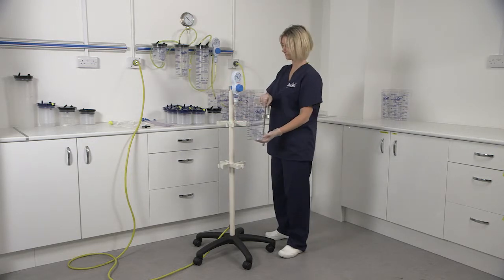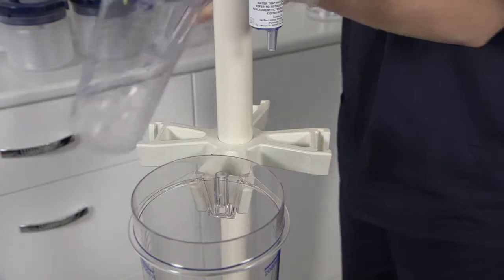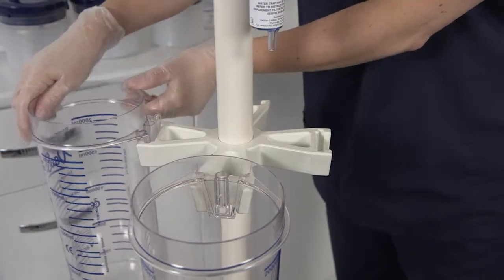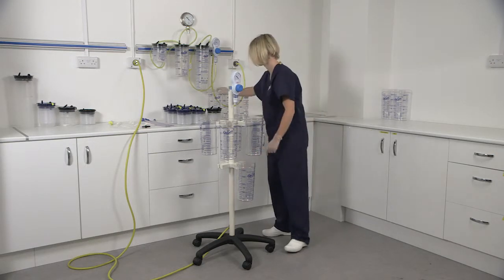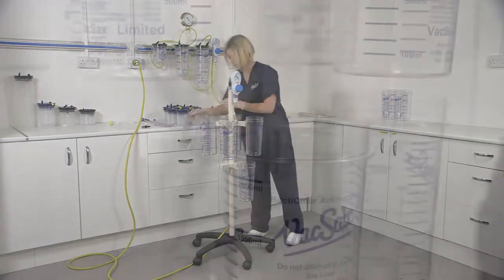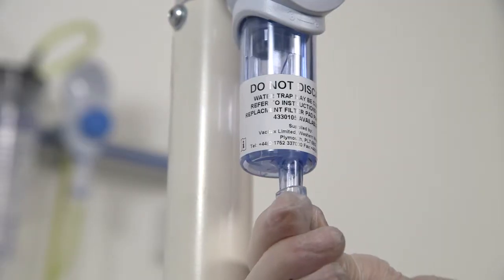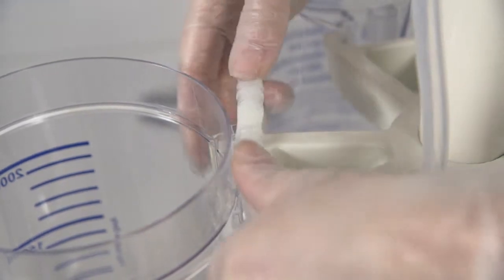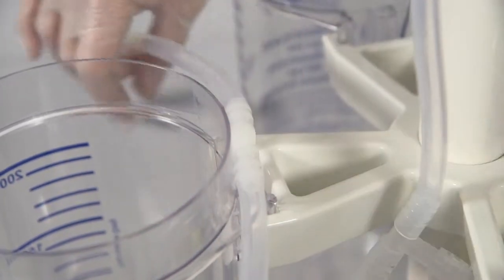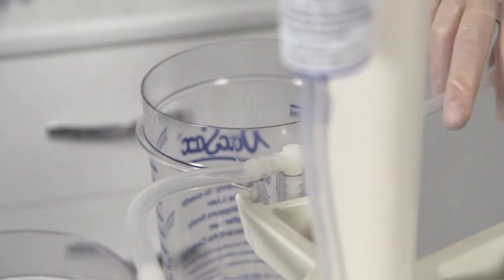Start by putting all of the eight canisters into position. Attach the cascade tubing set to the suction controller then starting with the first canister to the left of the controller push the first connector into the back of the canister and continue until all are connected.